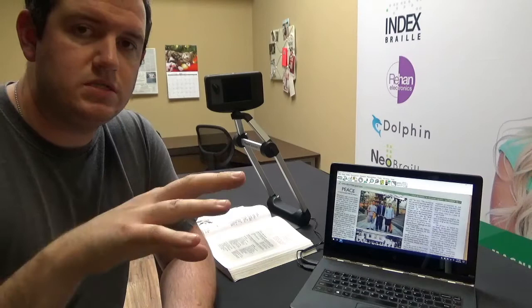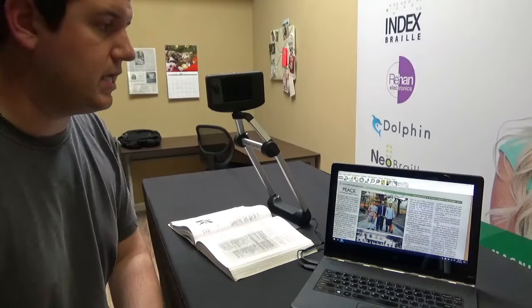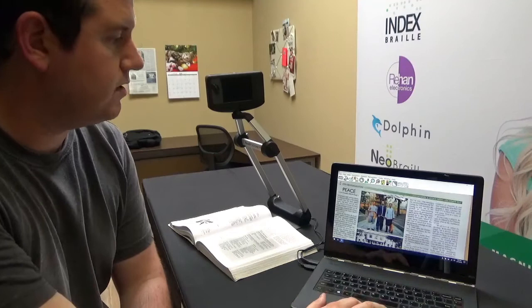So the first thing I want to show you is the Scholar is one of the very few that can actually do distance view OCR. Back here I taped up a newspaper so we had something to scan at a distance. I have it focused here on my screen and my camera pointed at it. So let's go ahead and capture that first.